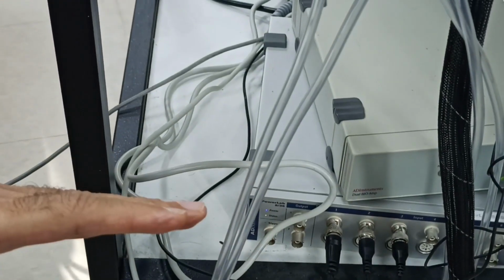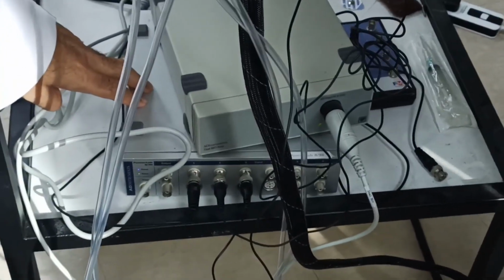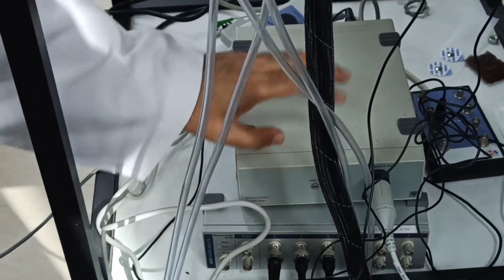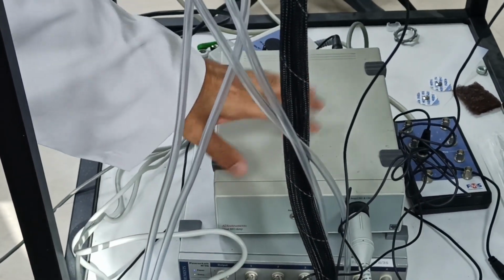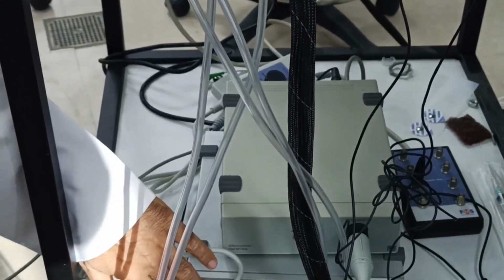Yes. These are cables for the sensors. This is what I told them before you came, that this is an analog to digital converter. Okay, so it collects the analog signals from the sensors and it passes them through the amplifier. Then this converts it into a digital form. So that's why it is called an analog to digital converter. So if it is already digital, then why do we need this piece here? This is basically going to feed the signal here. The ECG signal first is going to go through this, then it will be fed to the PowerLab. The sequence is like this.